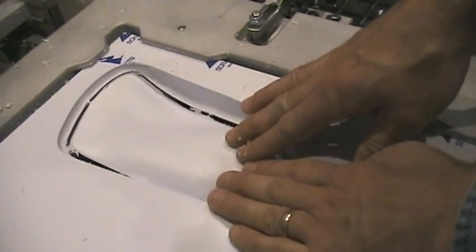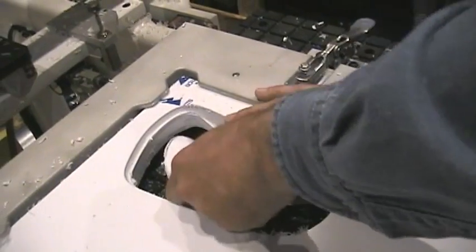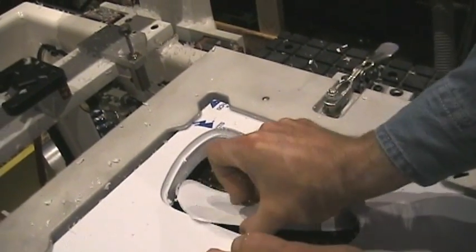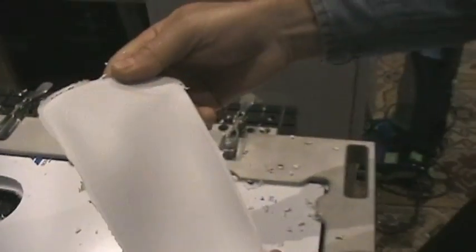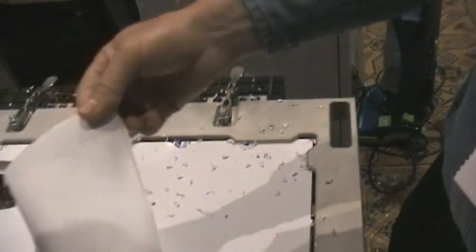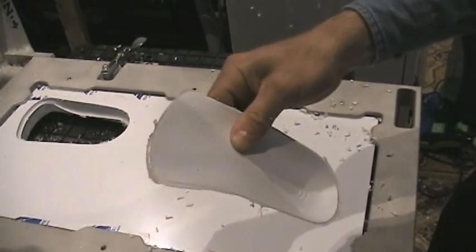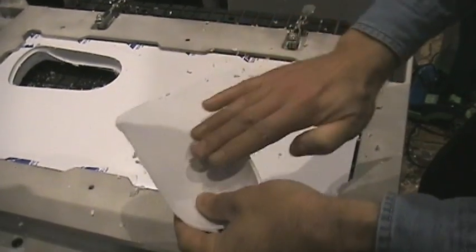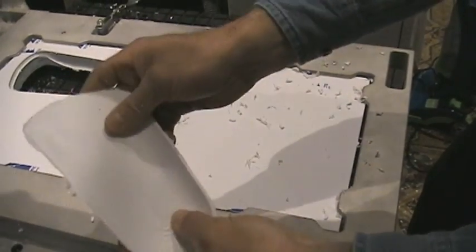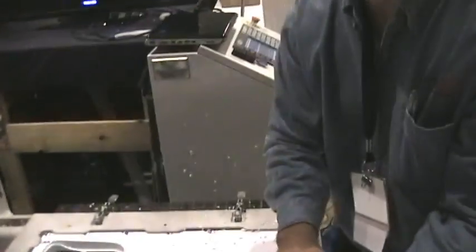At this point, it's beautiful — we can just pop this part right out of the material. So this is an arch support now that's ready to be finished. A little bit of touch-up finishing on the edge, and material on the top. That's why we use a coarser finish on the top: because the material and adhesive sticks better to the top surface with a coarser finish.